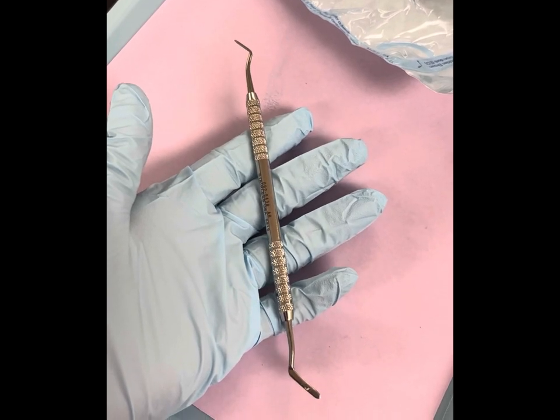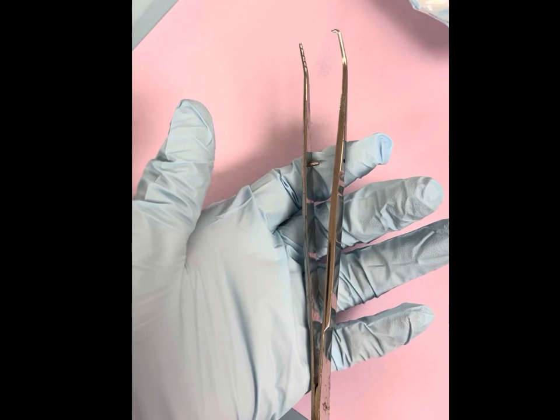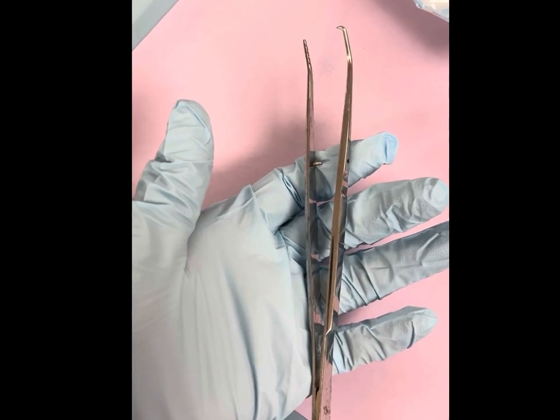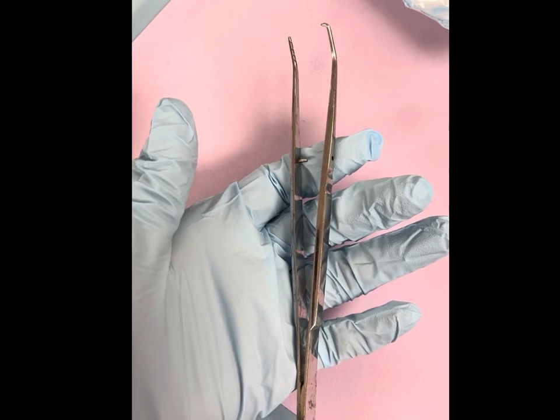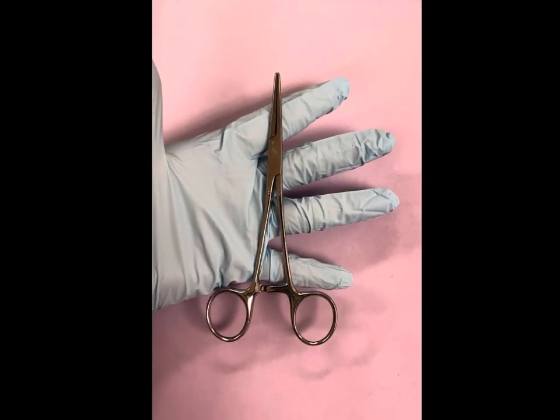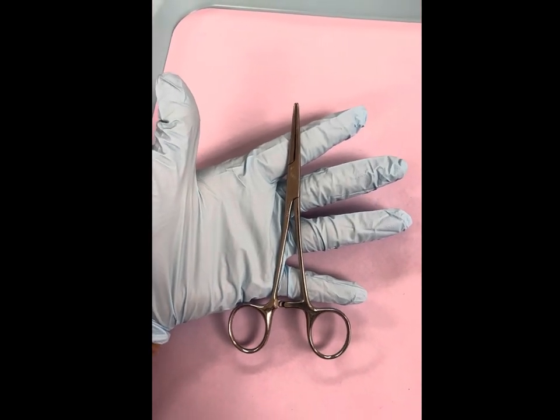The woodson is for placing and removing excess temporary filling materials. The cotton pliers are used for the placement of the cotton balls for isolation, as well as retrieval of small objects. This will be the hemostat, used to help manage bleeding during dental operations.